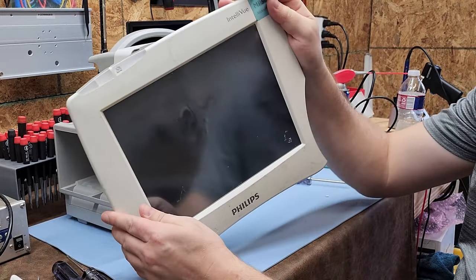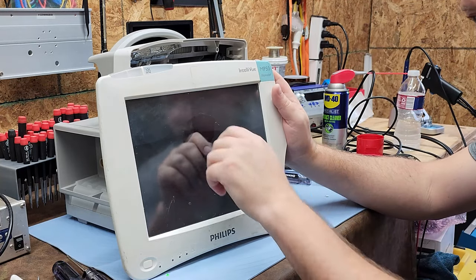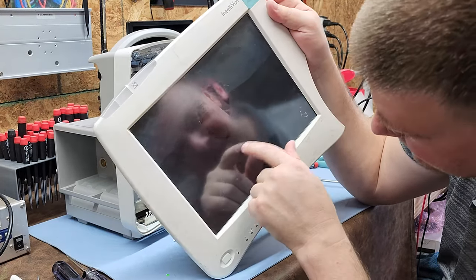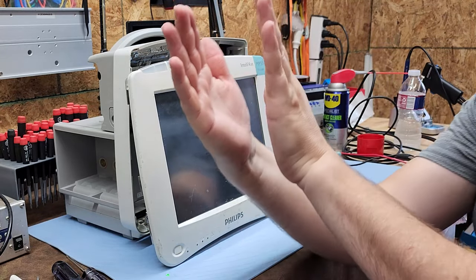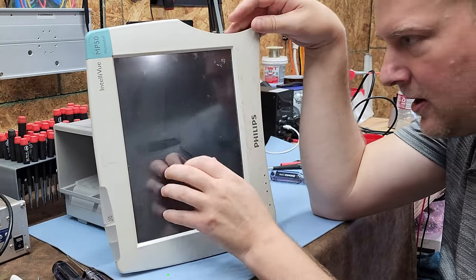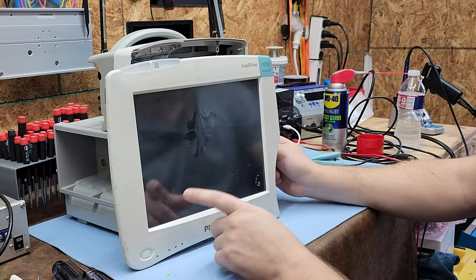You can see this is a touch panel — notice the shiny section right here. Someone stuck a sticker on the touch panel and when they peeled it off, it delaminated. Never stick anything on a touch panel — no labels, no adhesives, ever. Inside you can see a matrix of tiny dots; those dots separate the laminations. When you press a section of the screen, it creates a junction between the laminations.